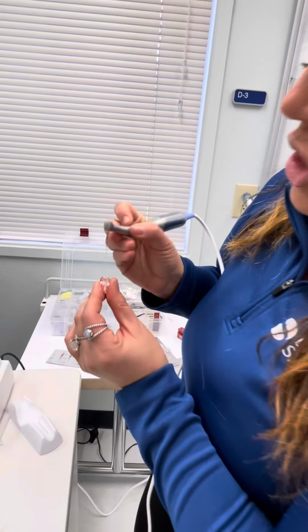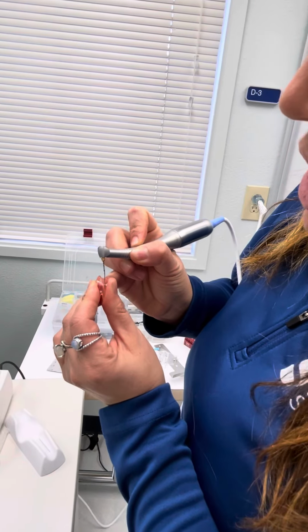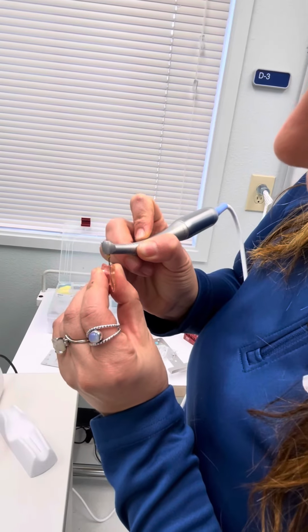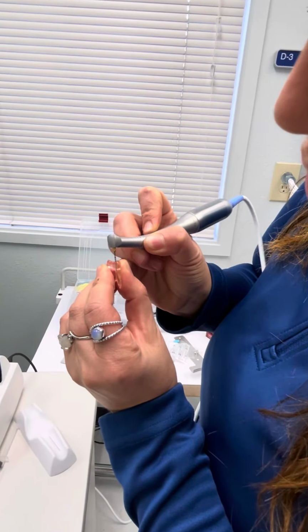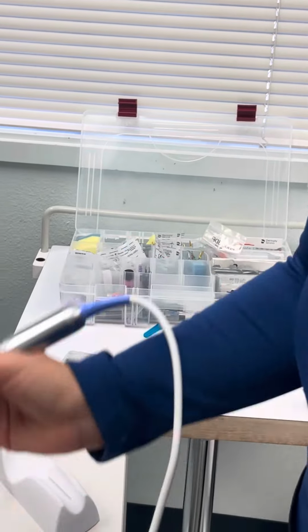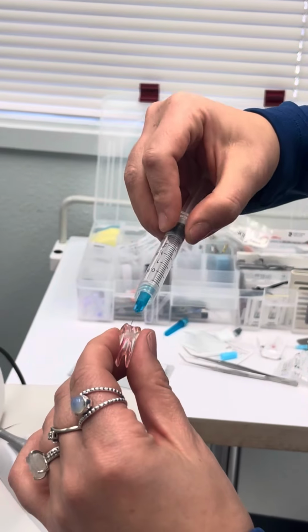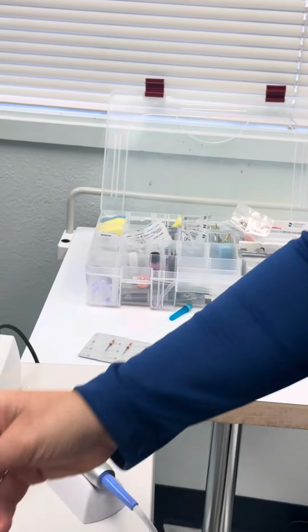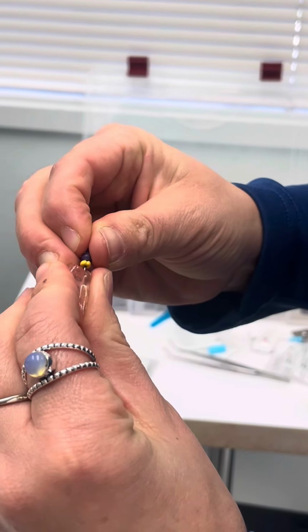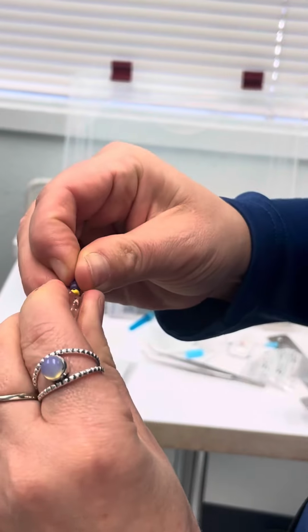You'll notice the noise is different with this. You hear it? So if you have the doctor and he's over there and he's working this glide path, he's going to kiss the apex 3 times that length. And then he's going to come out, clean his flutes, inspect them, irrigate, recapitulate, meaning just barely work themselves at the apex, making sure that we're not forming any blockage.